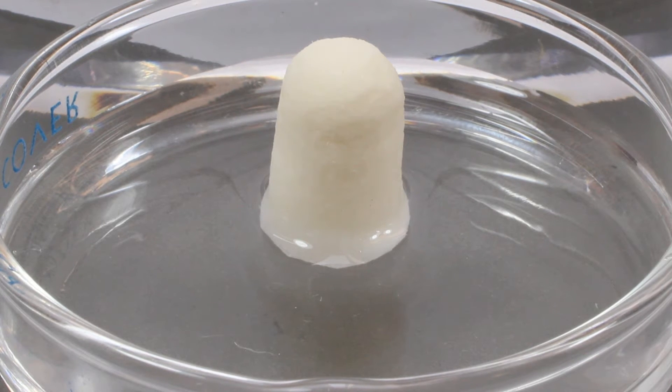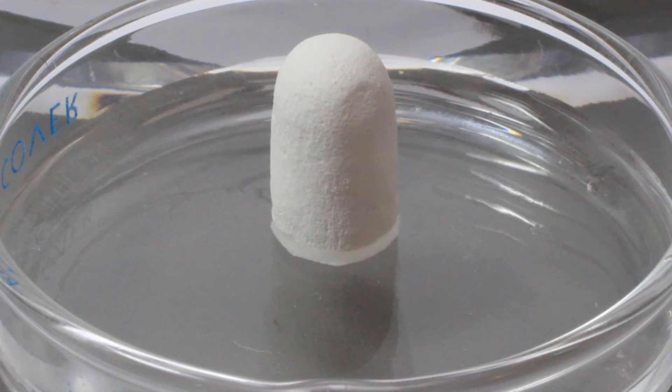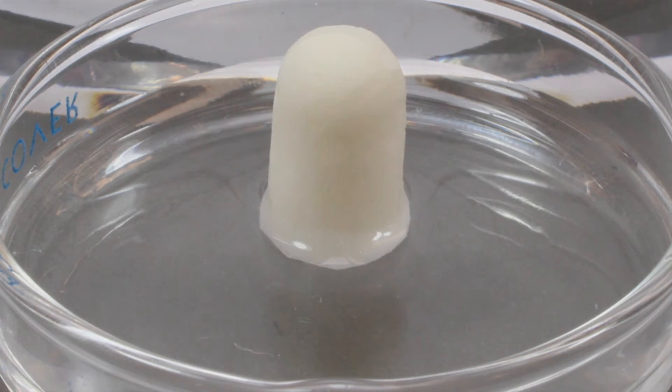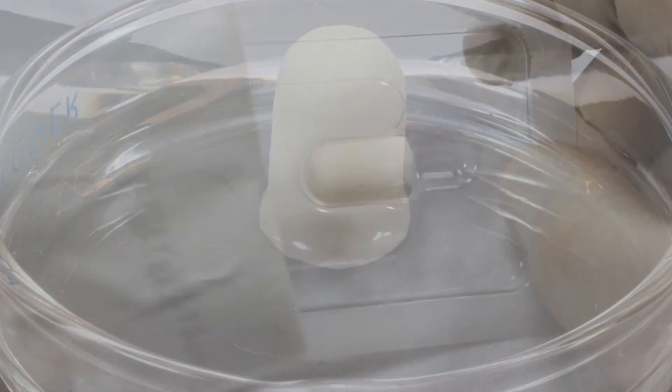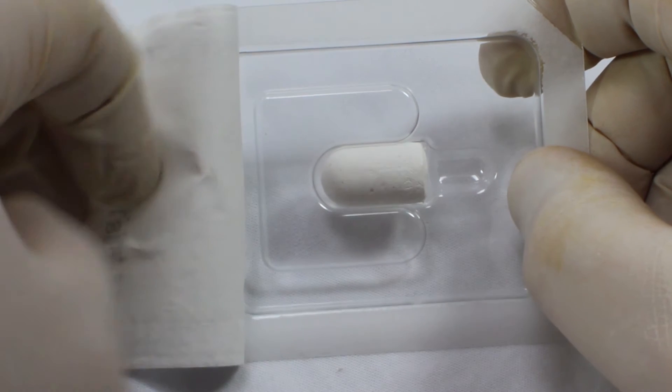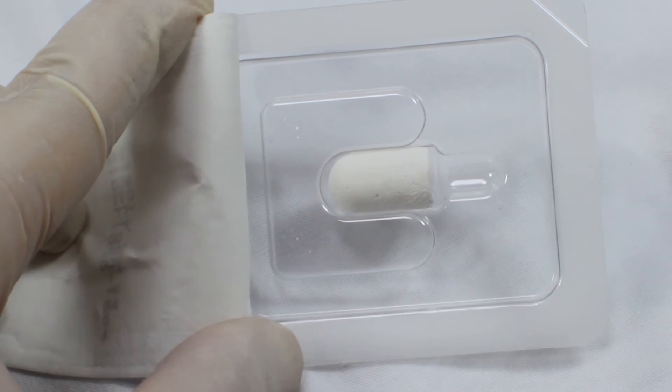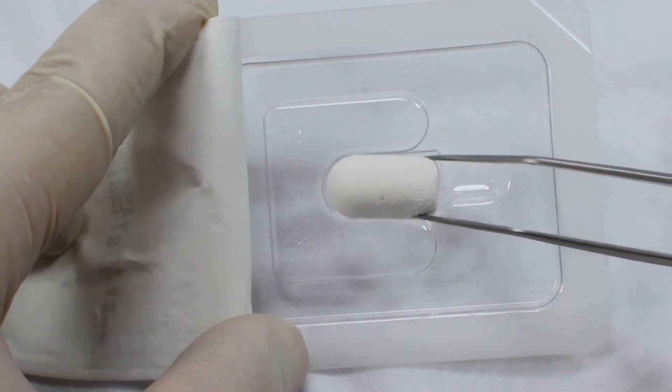Compare the Osteogen Plug before and after fluid absorption to see the change in size. After opening the individually sealed blister tray, we recommend that the Osteogen Plug be delivered dry into a thoroughly debrided socket.